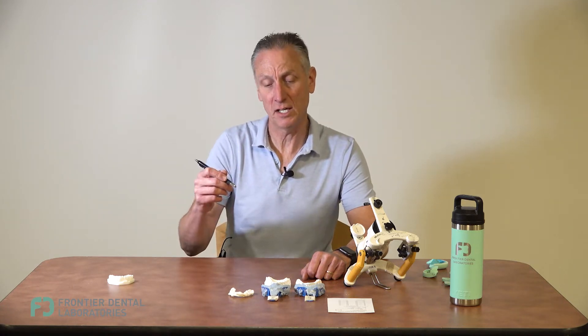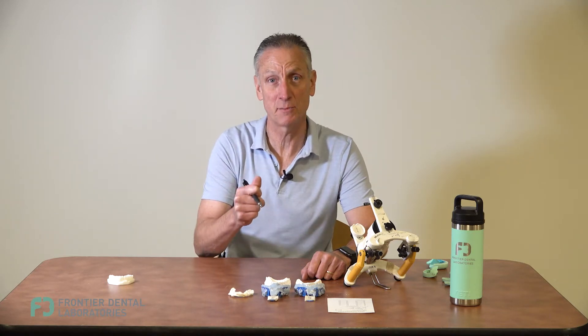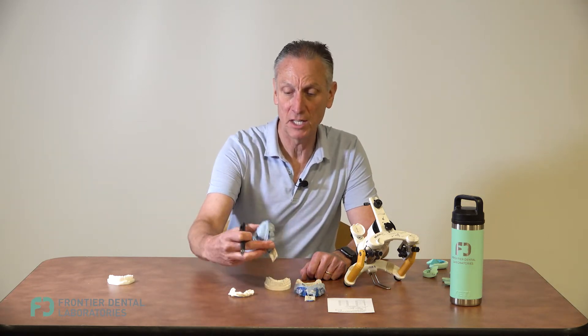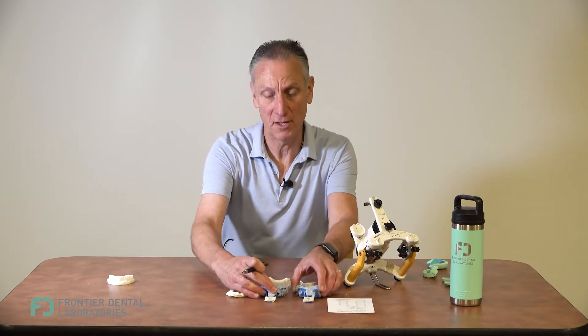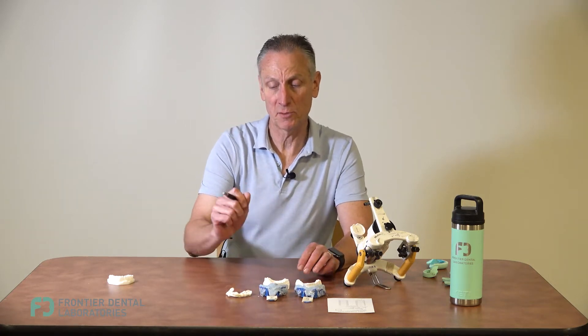With the diagnostics, they start off with really good impressions because these designs can be transferred to the mouth. Accuracy is the most important thing. We can get regular PVS impressions, alginate impressions of the models we poured up, or we can go digital.